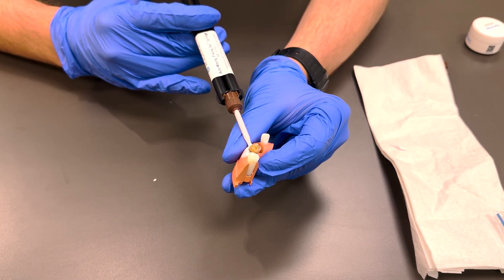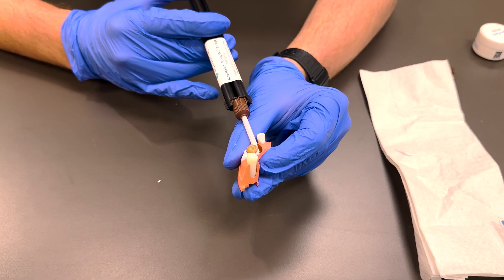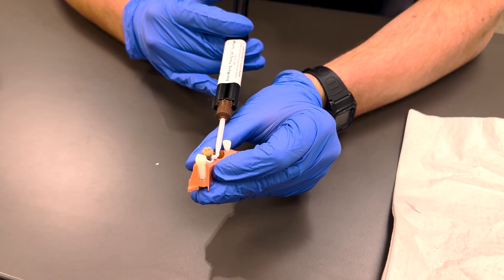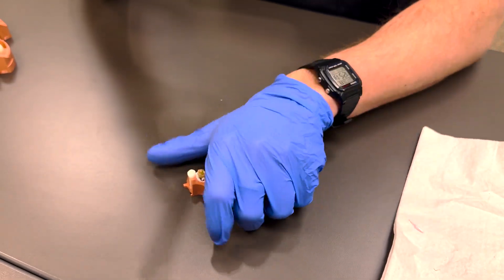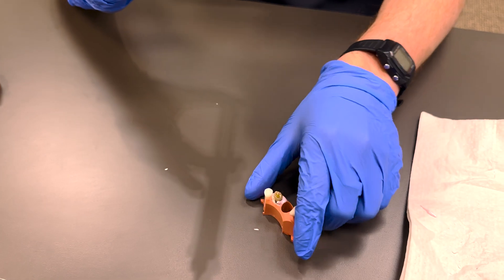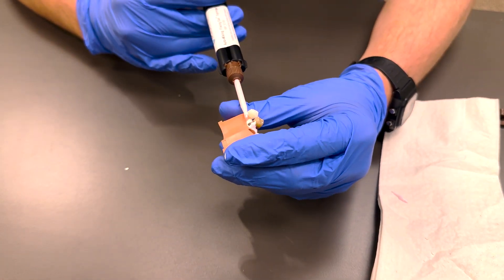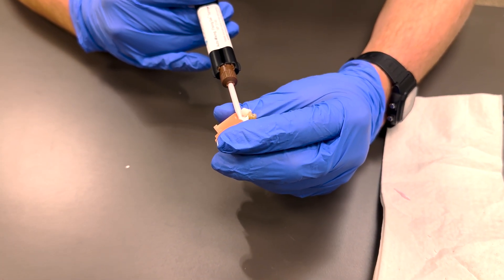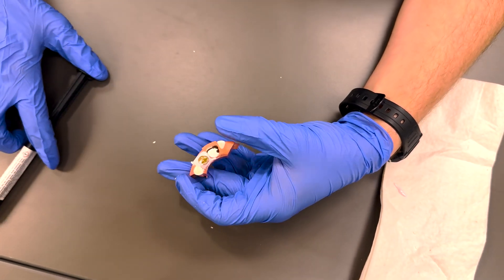It kind of just goes everywhere, but your goal is to create a barrier that will harden and dry. What that will do is make sure your tooth stays in place while you're actually working on it. Perfect, just like that.